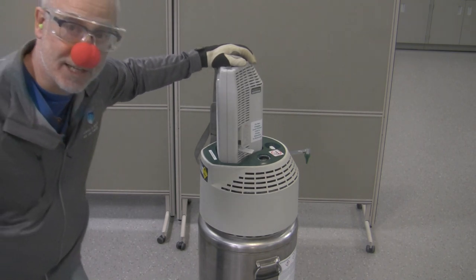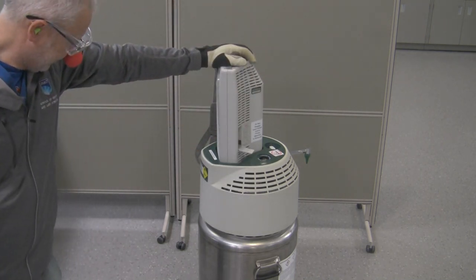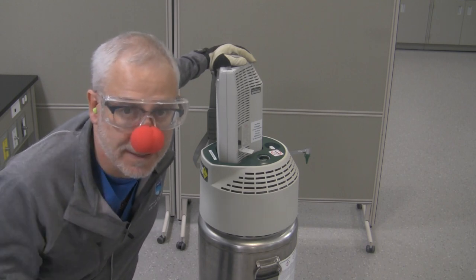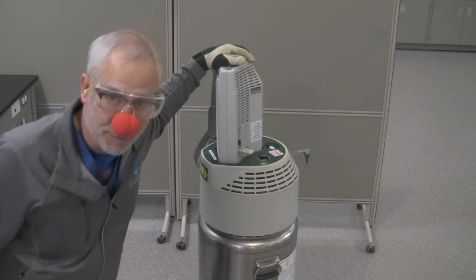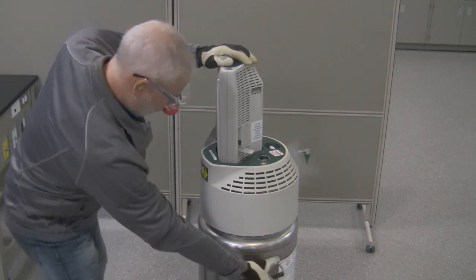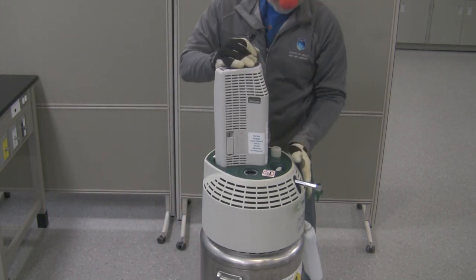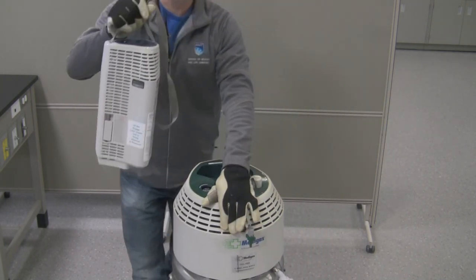Can't really see the vaporization yet. Actually — just kidding, you don't really need the clown nose, you don't really have to wear it, especially if you have a full face mask on. You hear the sound change — that means you're close. See the vaporization start? Lever off, fill valve off, find that button right here. Push — detach. That's all there is to it.